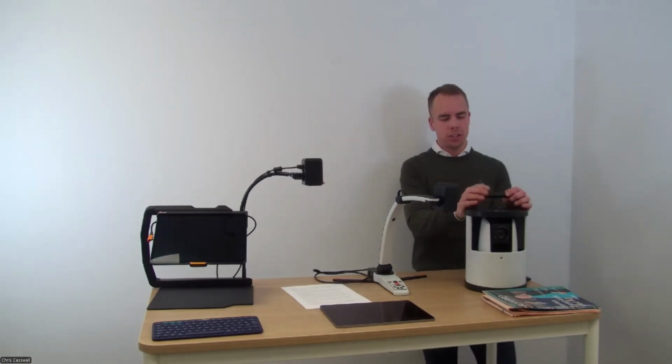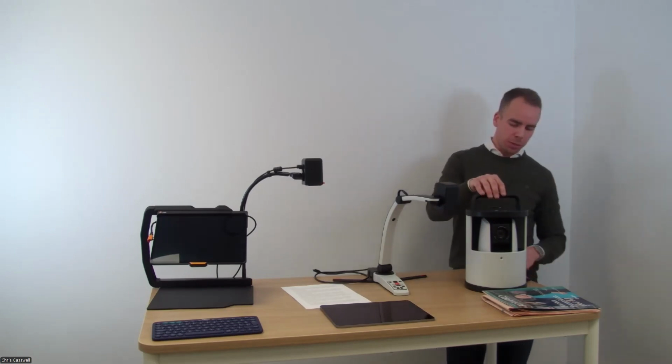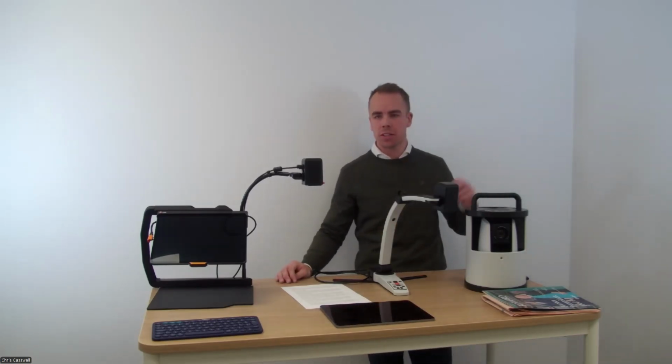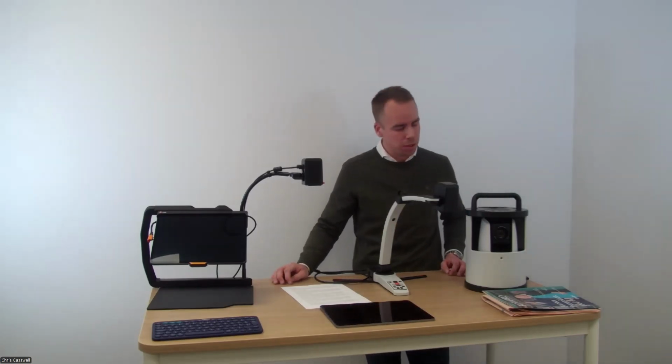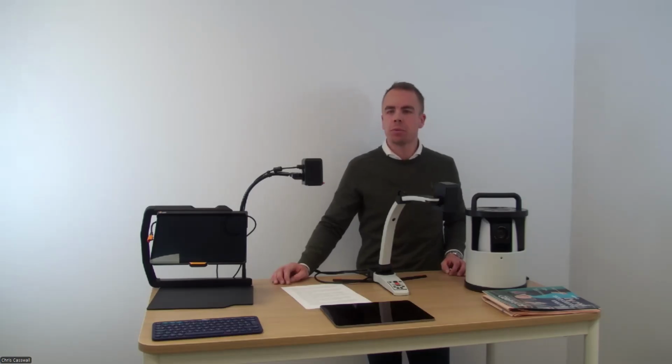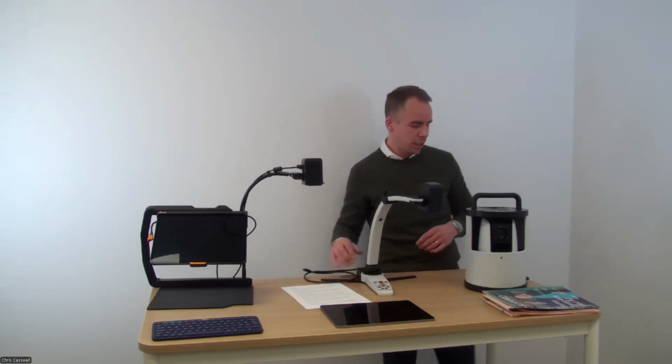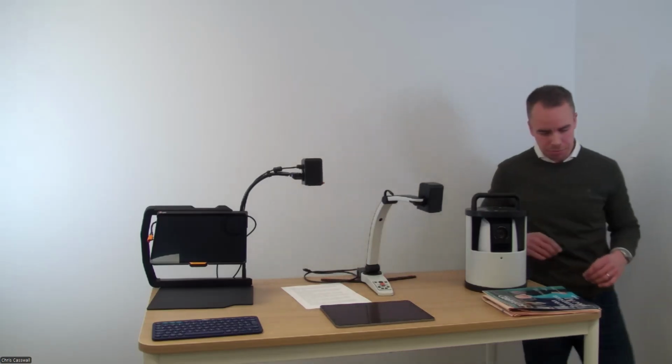So I will connect my iPad here to the MagniLink Air Go. That will be the first one out. And to show you some of the features that Kimberly mentioned, how you can control the motorized 30 times optical zoom camera on this product. And I will also show you the preset positions because those are unique to this product. And then we will continue with the other ones.